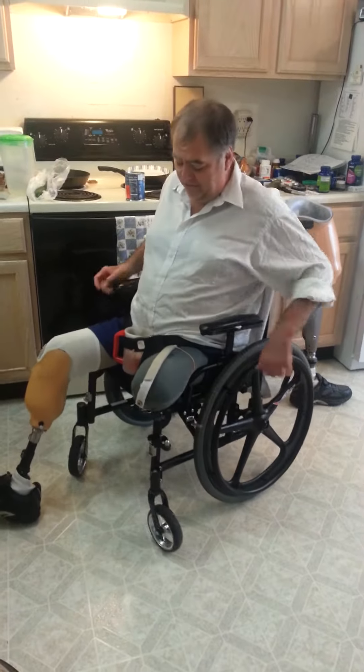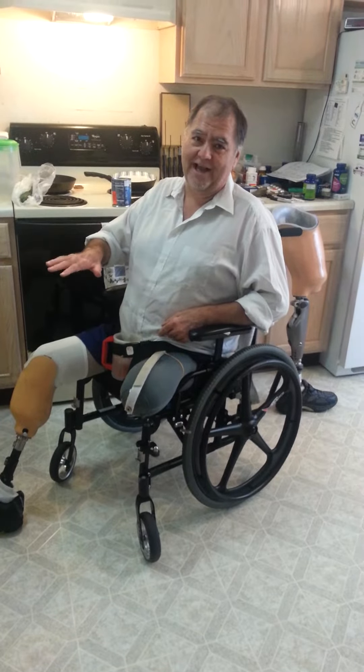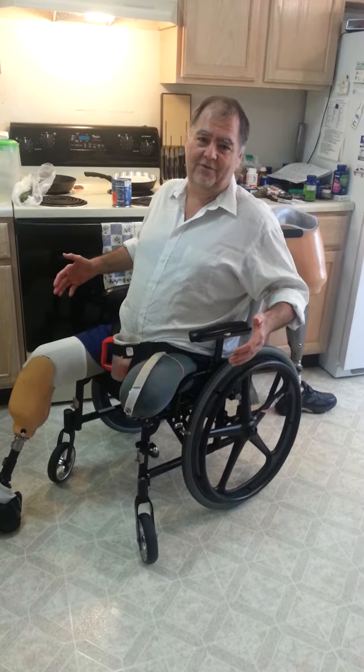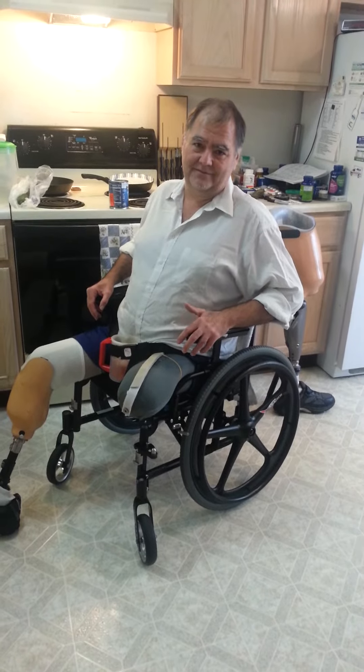I will let you know that I've tried something similar with pop cans — too small, doesn't work for me. They slide right out and make a mess. But this is how I managed to carry my drinks around with me for a long time when I first came out of the hospital after my amputation. That's it.